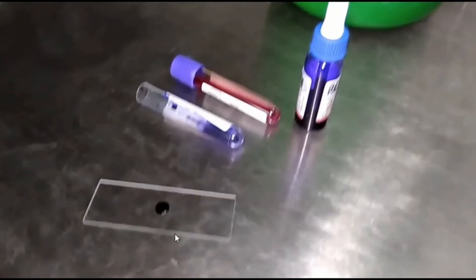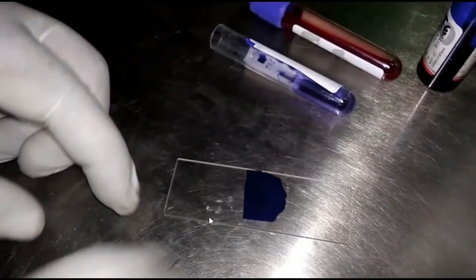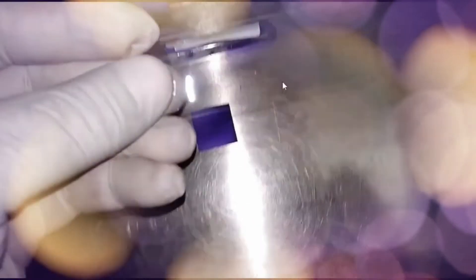This slide for observation under microscope at 100x objective and this one for 40x objective. From this slide we will be able to observe live microfilaria, whereas from this slide dead microfilaria will be seen.